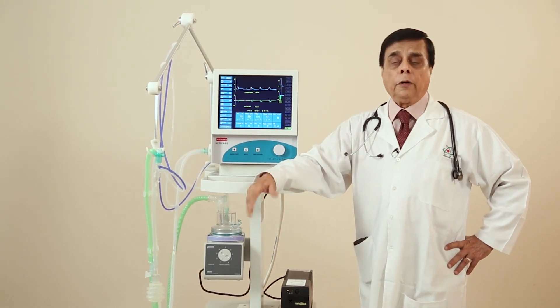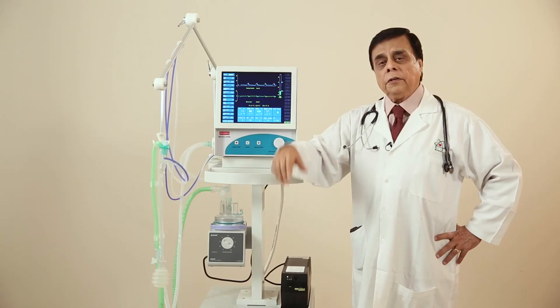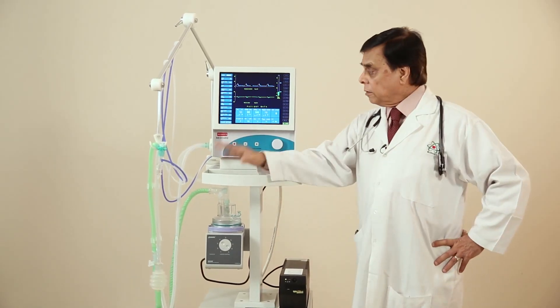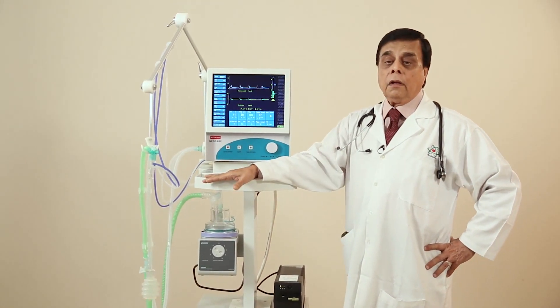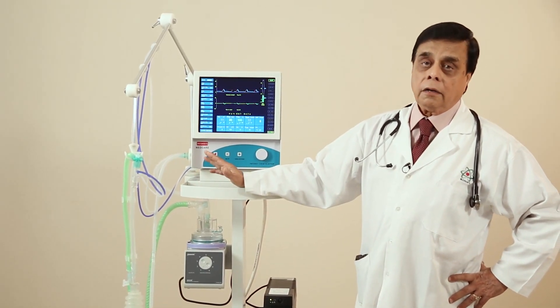Modes offered include SIMV, CPAP, spontaneous mode, assist control, and inverse ratio ventilation, all incorporated in this machine. There is pressure support and apnea backup, which is very important particularly when weaning the patient from ventilation. There is also an effective trigger system, triggering the patient with pressure and flow, which makes triggering simple. There are many safety factors including alarm limits, particularly volume and pressure limits.